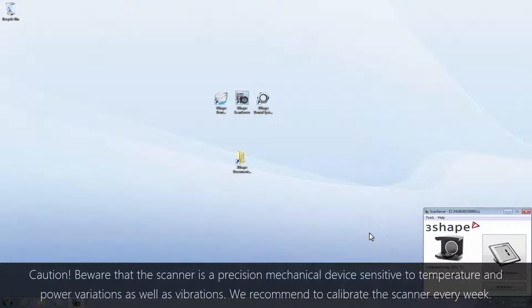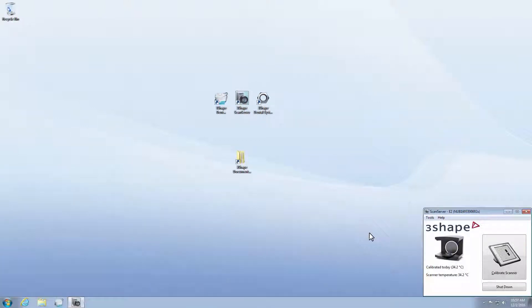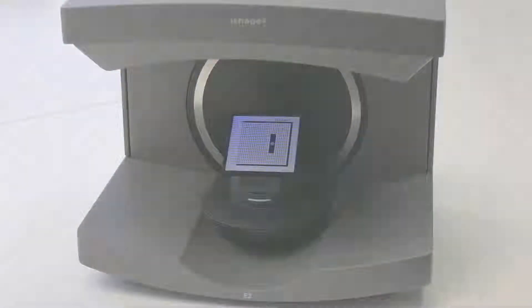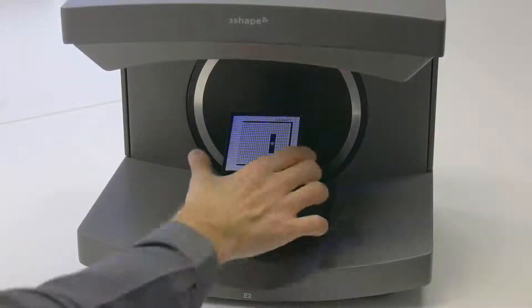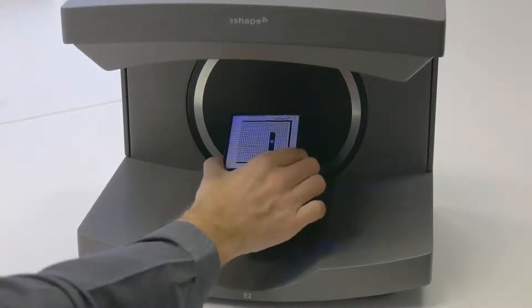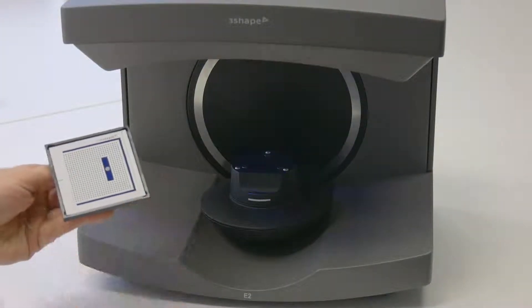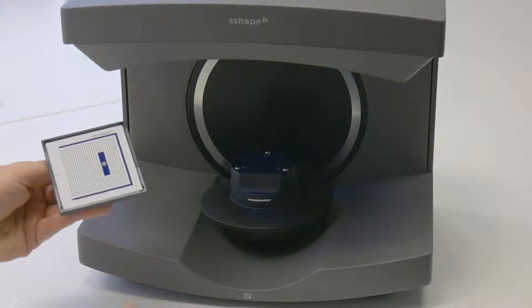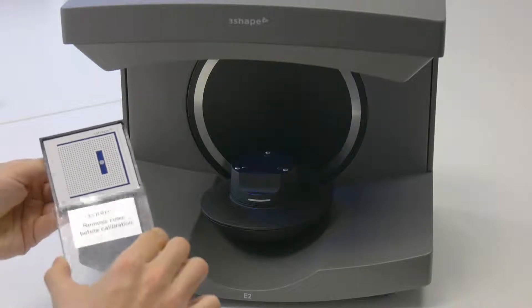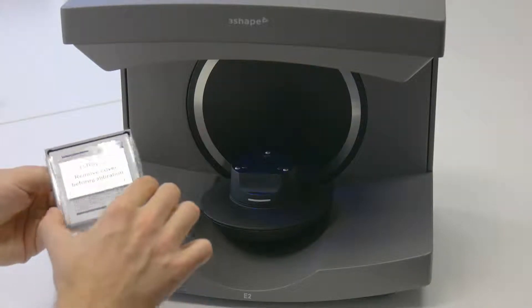Remember that it is recommended to calibrate the scanner once a week, and also after every time the device has been moved to a different place. If the software detects at least a 5 degree difference since the last calibration, it will automatically ask for a new calibration.